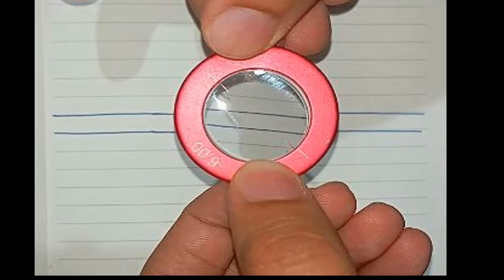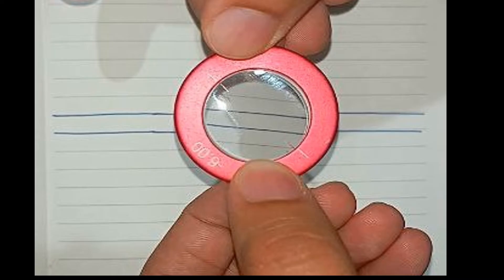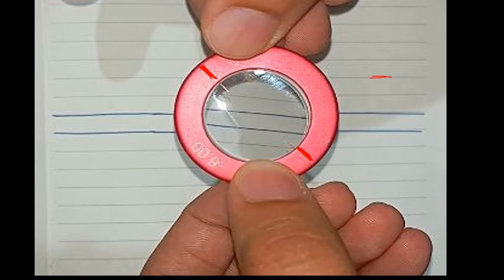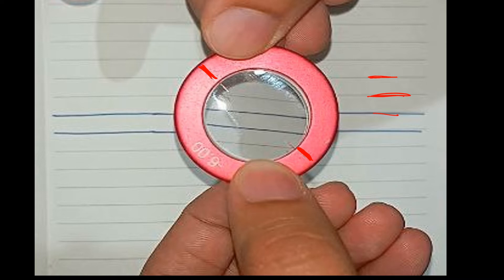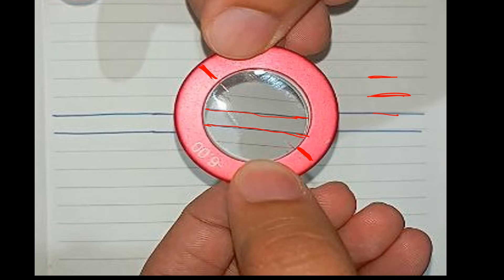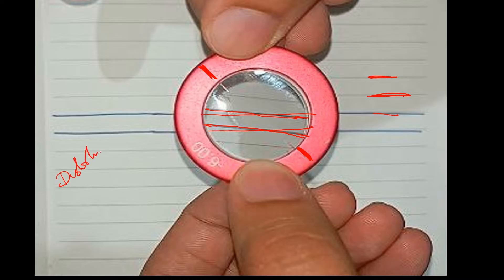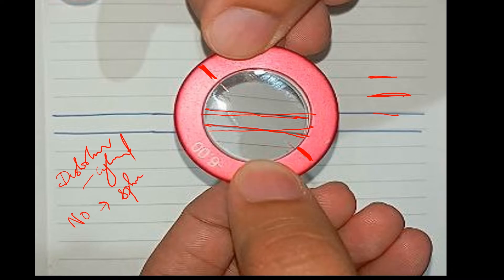Here an astigmatic or cylindrical lens is placed such that its axis is not coinciding with the lines of the cross. The axis, marked in white and highlighted in red, is not aligned with the horizontal lines. Therefore, when looking at the horizontal lines through this cylindrical lens, you see a break in the lines — which is the distortion of the image. With a spherical lens, the lines would appear straight. So distortion means a cylindrical lens; no distortion means a spherical lens.